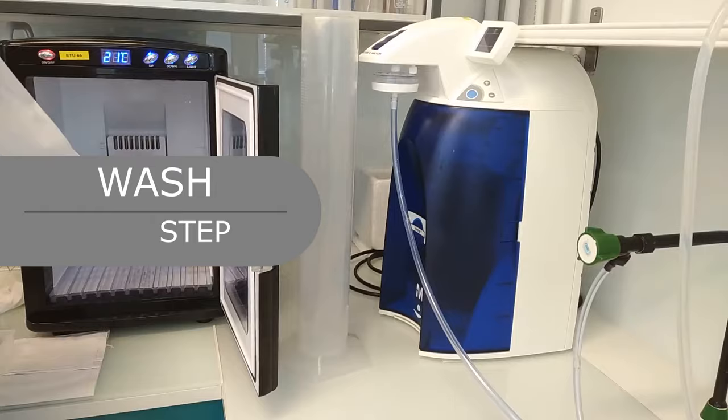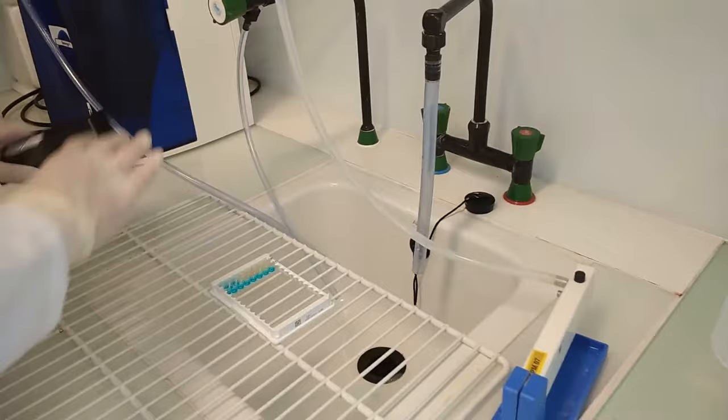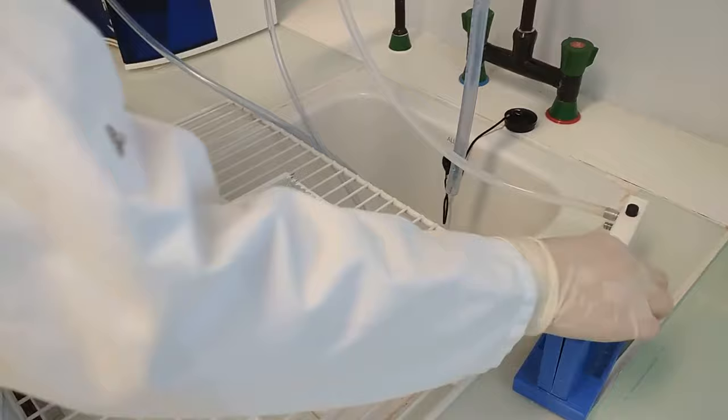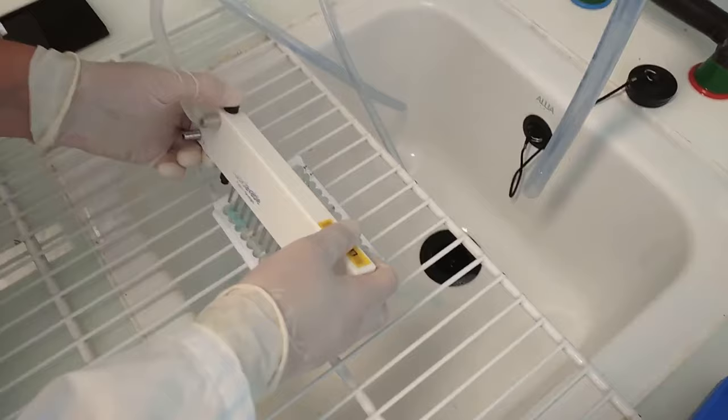Wash step: The quality of the wash step may influence results. Empty the wells and wash each well 3 times with approximately 300 microliters of the wash solution 1X.